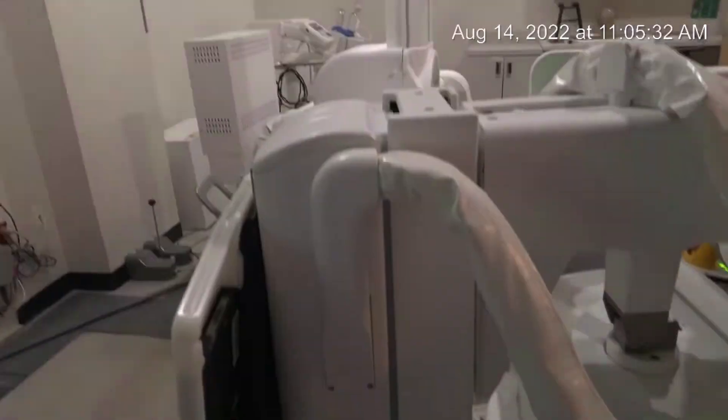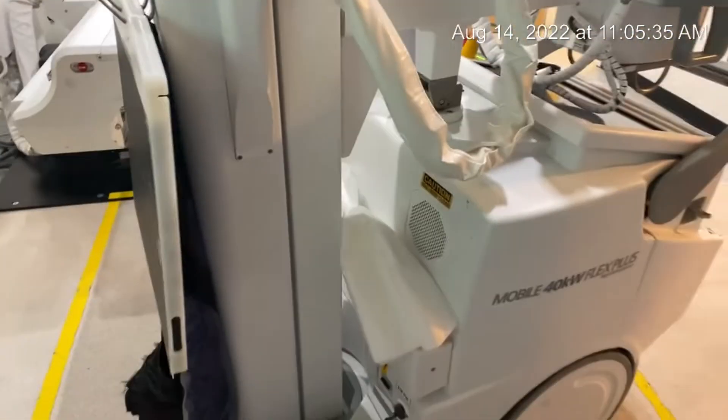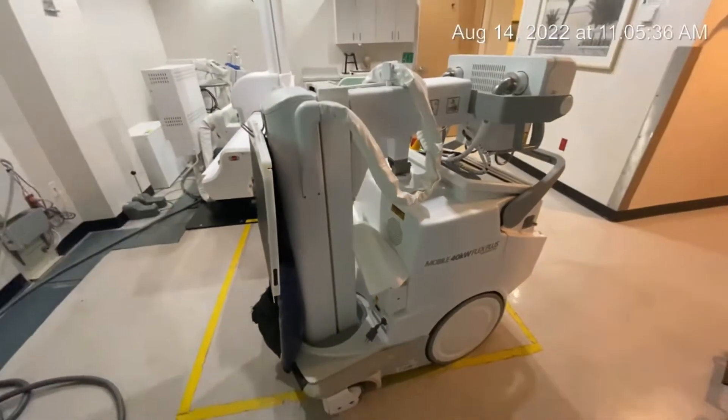So that's a little glimpse of the standard room. Now in this next clip I want to show you a little bit more about a portable machine and how it looks — kind of like a tour if you're new to the radiology field and you've never seen a portable x-ray machine.